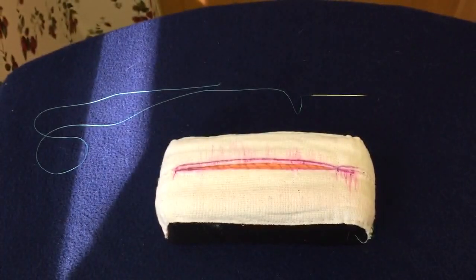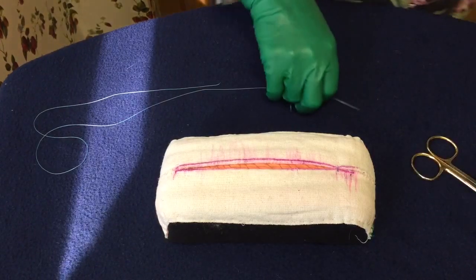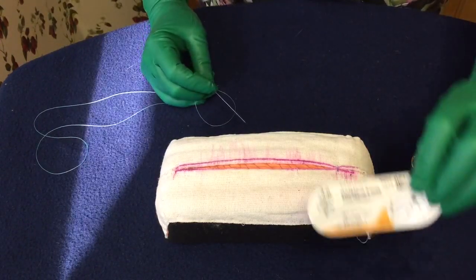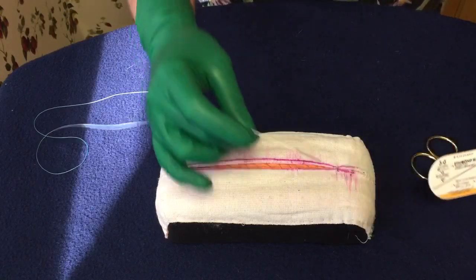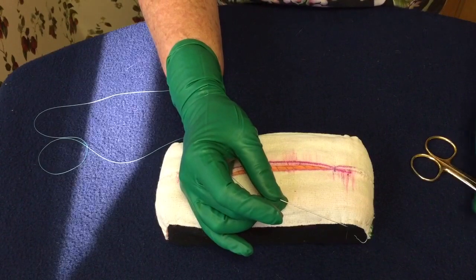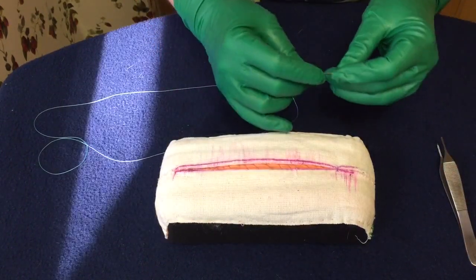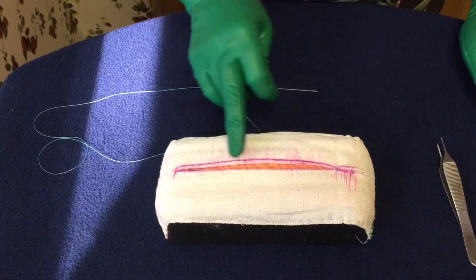The reason I'm doing this video today — I thought I was finished with the suturing ones — but I had someone ask me a question about when you use the Keith needle, which is the straight one. I wanted to experiment and see what the options were before I did this video, and I think I have the options. The way I see it, there are three options.